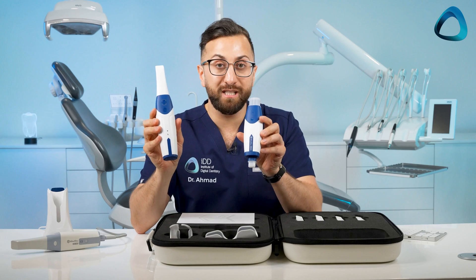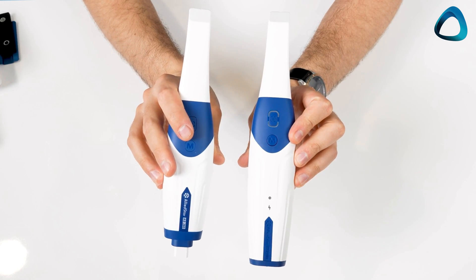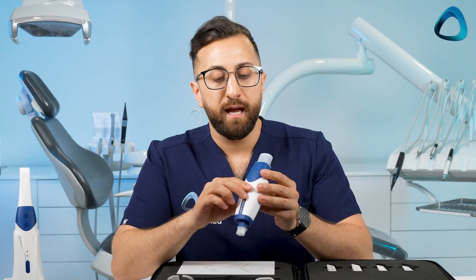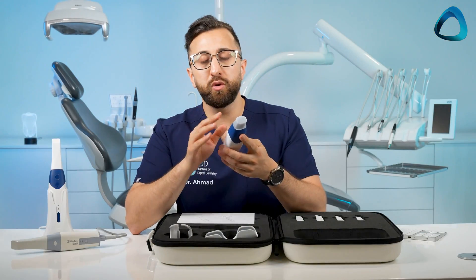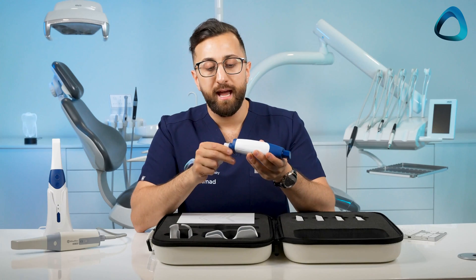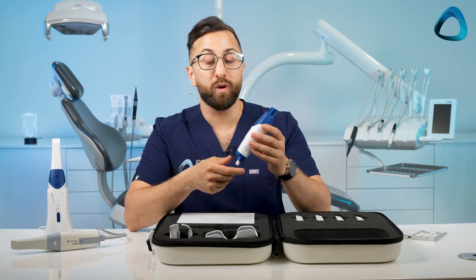There are some differences between the wireless version and this wired AS260. Notably, the wireless version has a little lightning bolt symbol and a connection indicator, which this one doesn't — all related to the wireless technology. With the AS260, it's got the same scanner button at the top and also at the back of the scanner. These scanners have two scanner buttons, which is a really cool feature — no matter how you're holding the scanner you can access a button. It also has a mode button used to progress through the workflow.